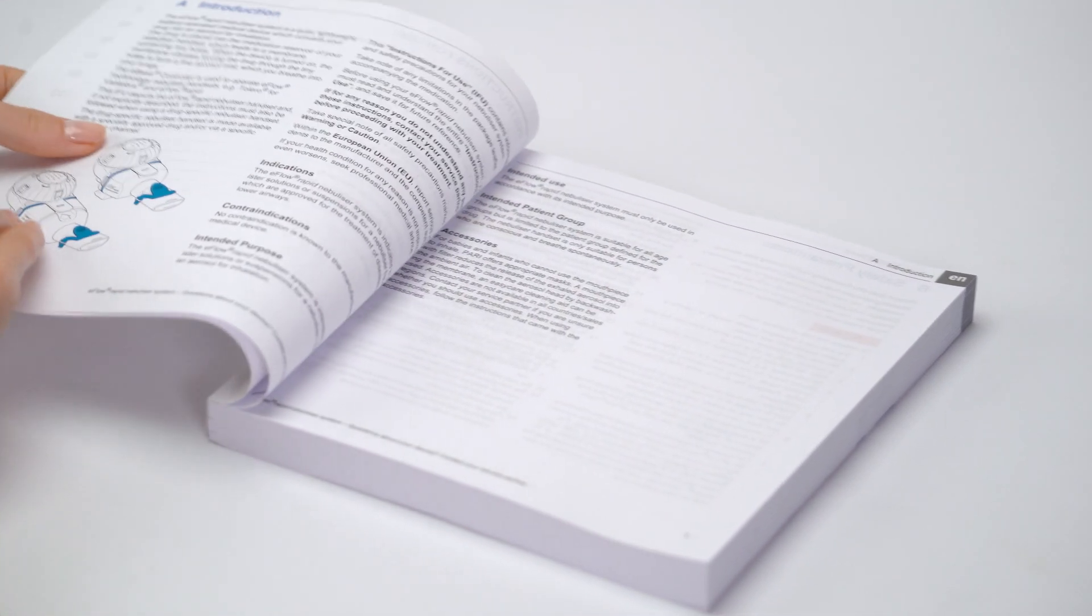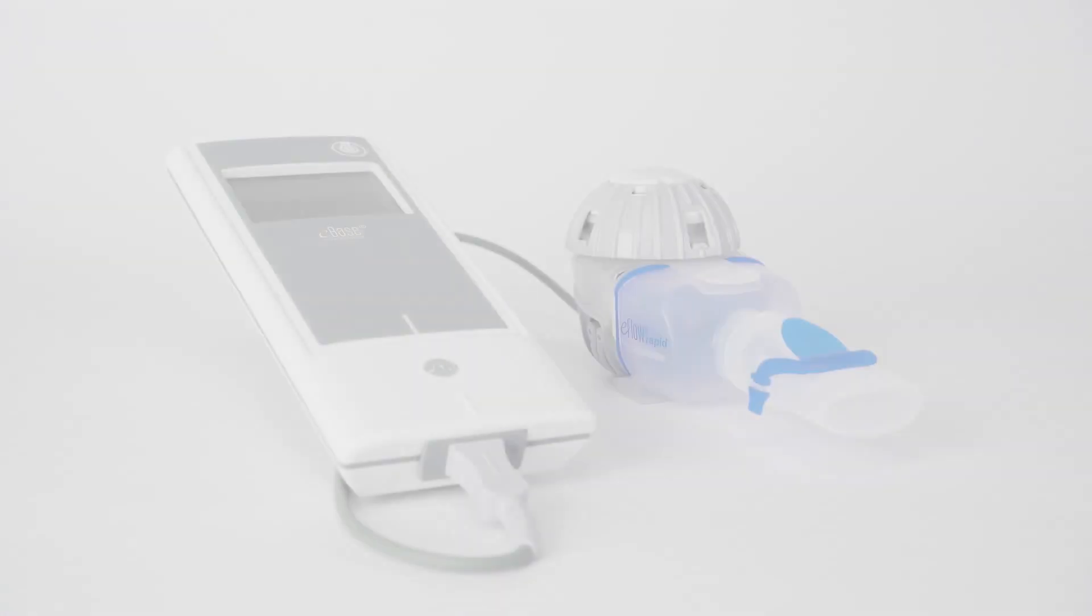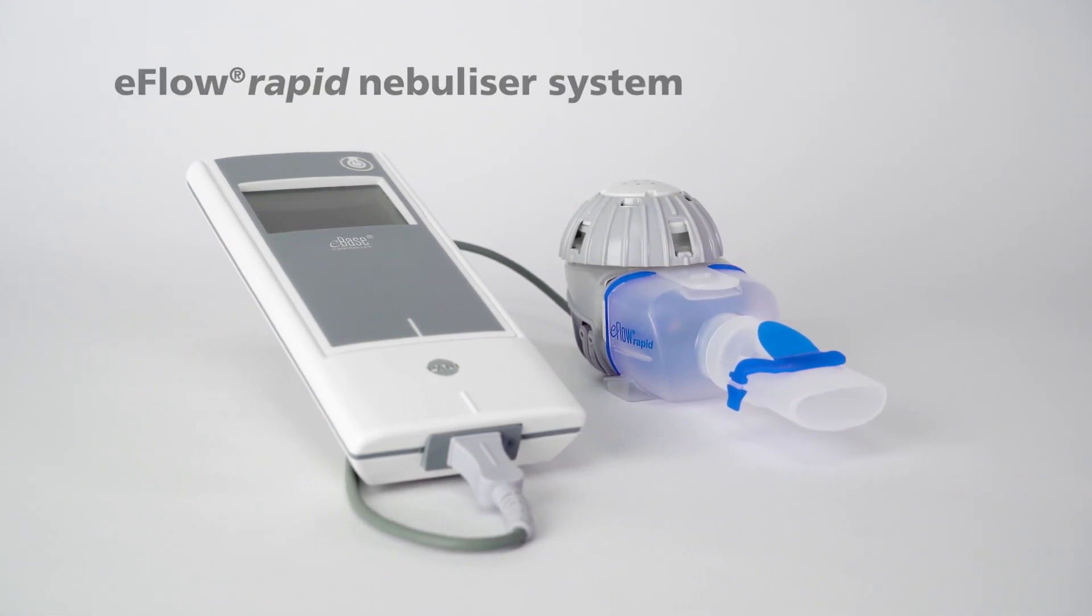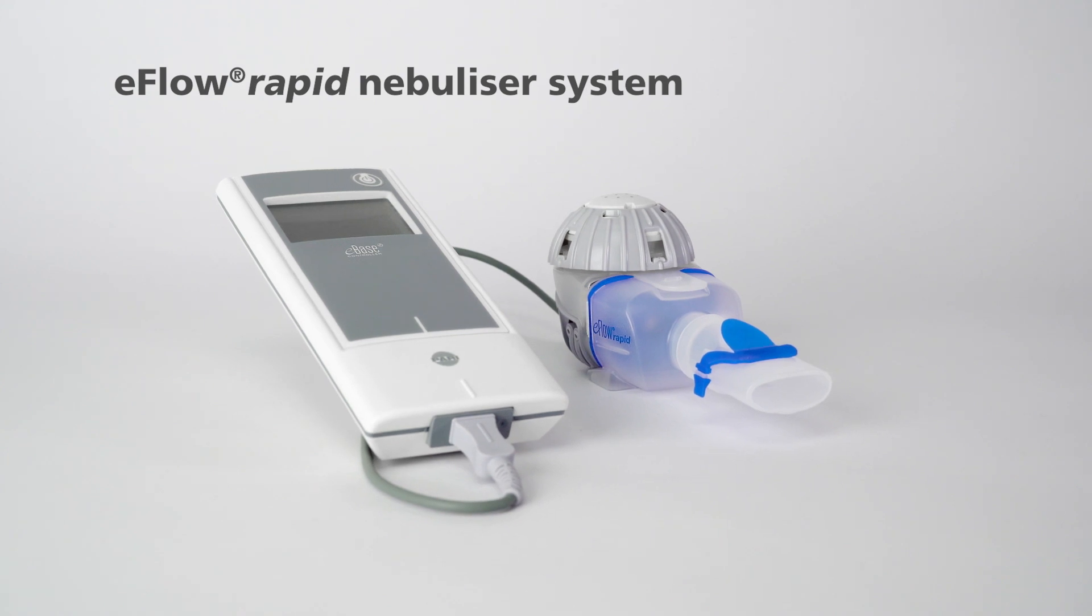Always observe the instructions for use when cleaning and disinfecting your eFlow rapid nebulizer system.